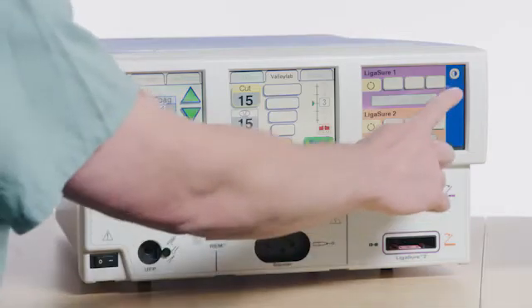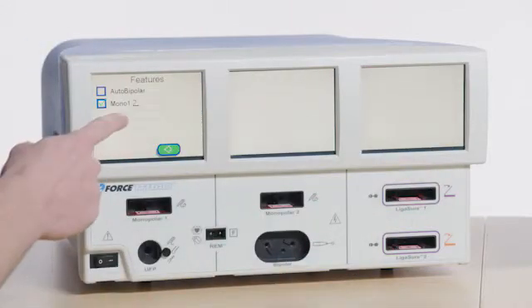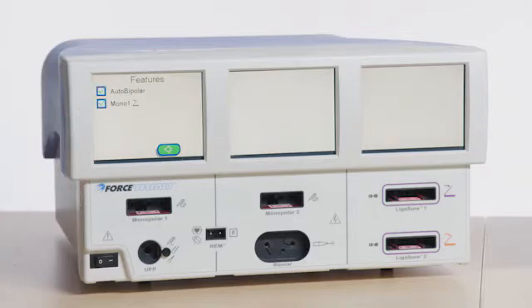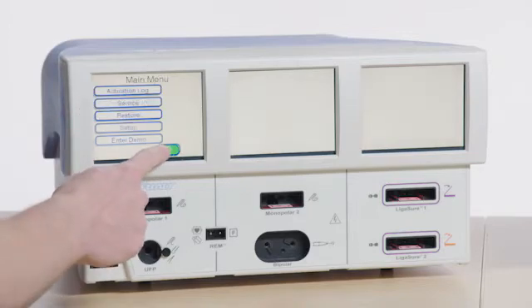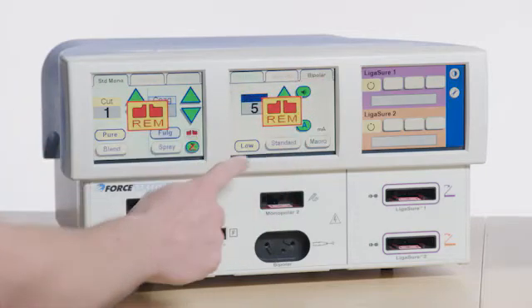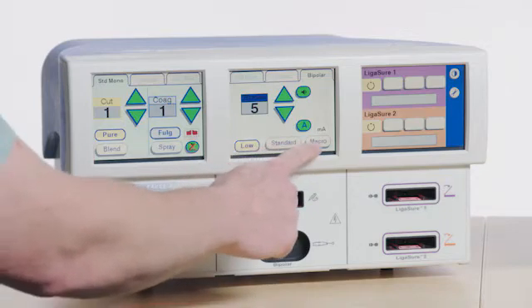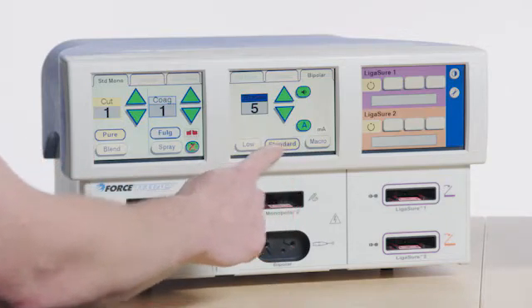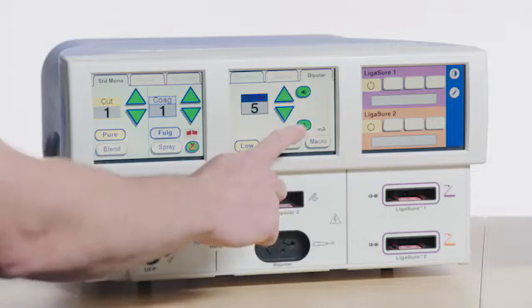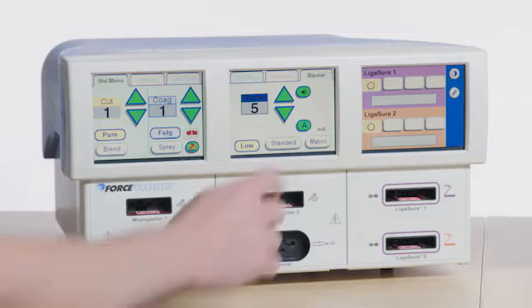Verifying auto bipolar function: Enter the auto bipolar mode on the Force Triad by pressing the following buttons — Tool Setup, Features, and Auto Bipolar. Verify that the auto bipolar function is available in the low, standard, and macro modes.